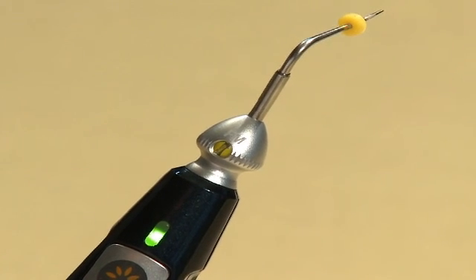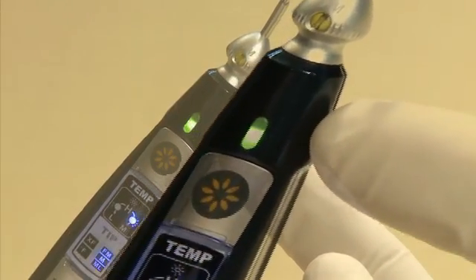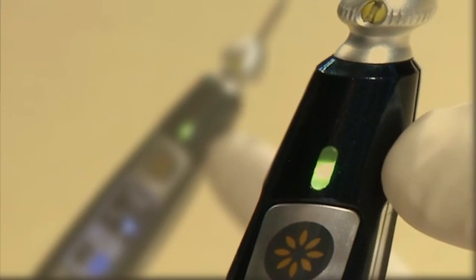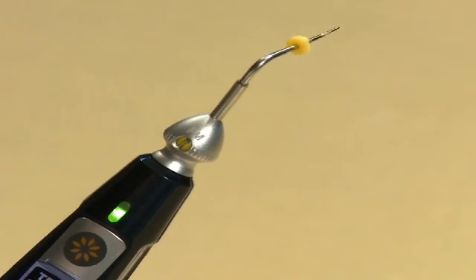The indicator above the operation button will light up when the tip is heating up and/or cooling down. Green light indicates that the tip is inserted in the handpiece correctly and that the temperature is below 100 degrees Celsius. Blinking green light indicates that the pen tip is overheated.